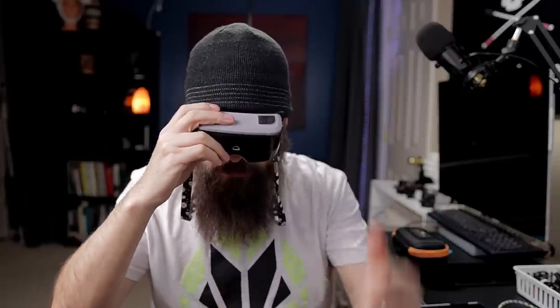I don't want to have to wait before playing a board game because I've got to get the device on and tuned into the right mode. I want to just be able to enjoy my family — like, 'Oh it's my turn, let me see... snake eyes, okay, move my piece.' The wearable device is supposed to help me and enhance my experience, not take me out of the experience.